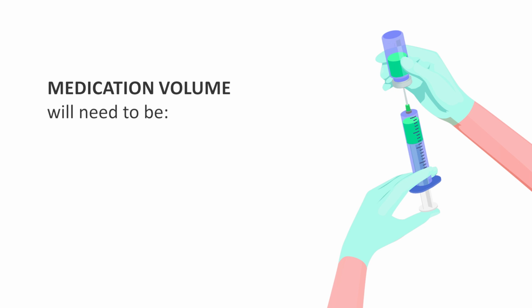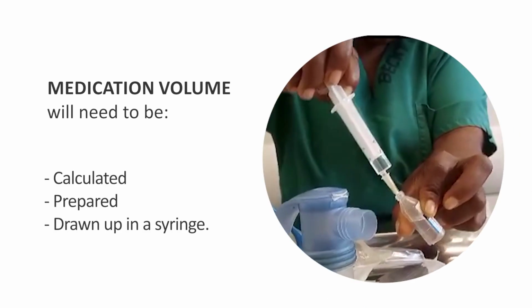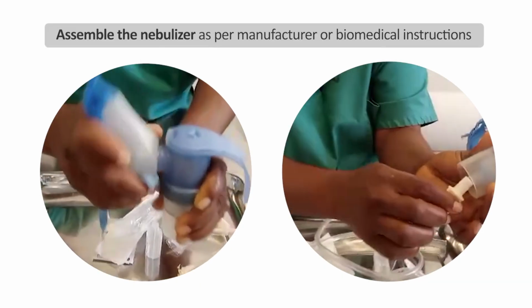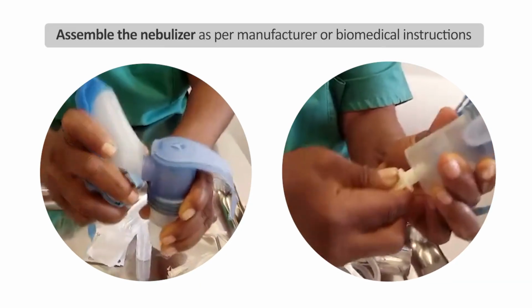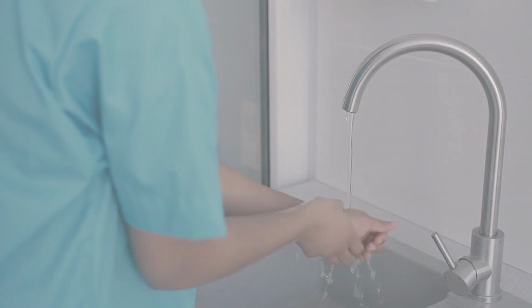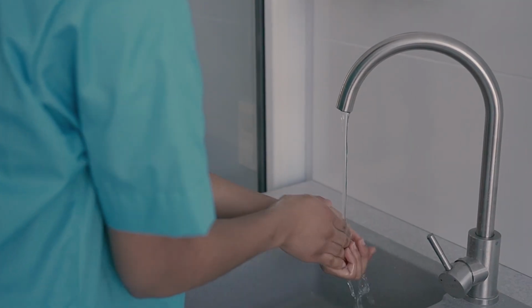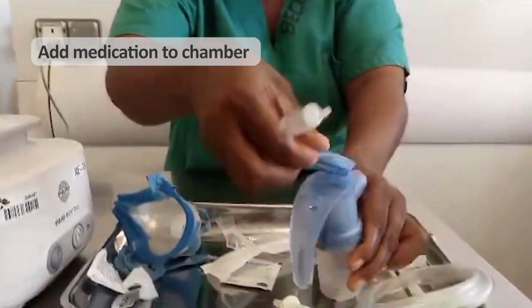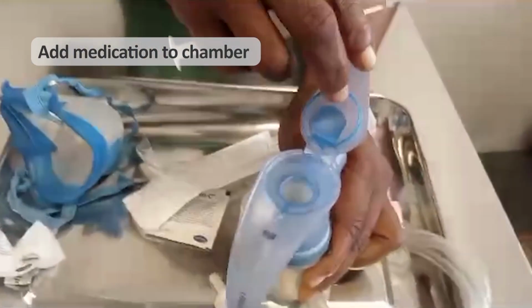Before administration, the medication volume will need to be calculated, prepared, and drawn up in a syringe. Next, you assemble the nebulizer as per manufacturer or biomedical instructions, but remember to perform hand hygiene before touching the equipment. Open the medication chamber on the nebulizer and add the prescribed medication.